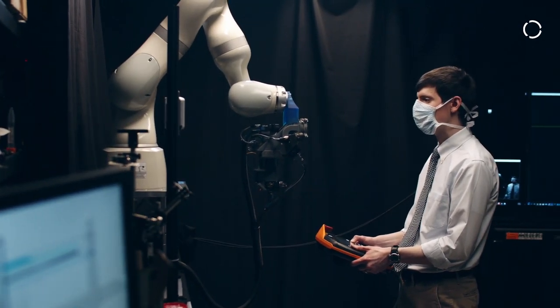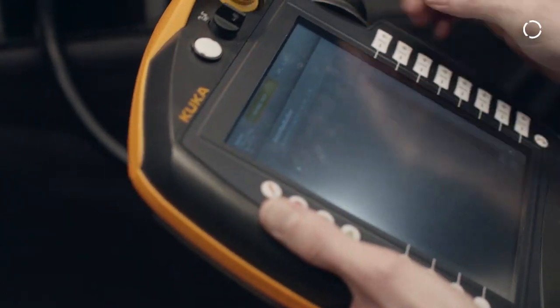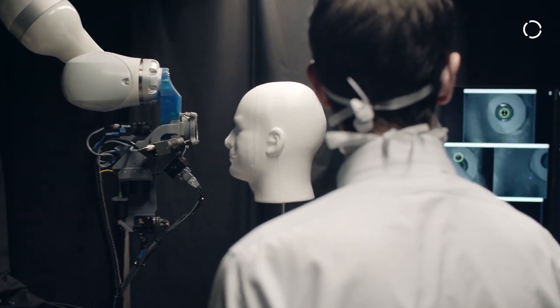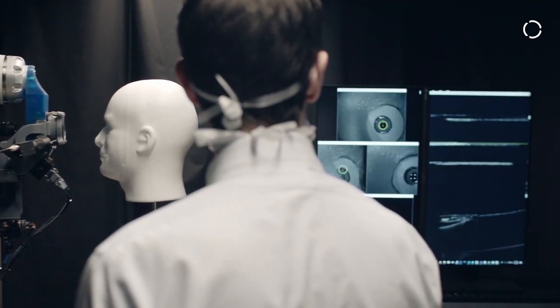There are two real main features of the system. The first is it can operate completely independently without any operator intervention. It does this using face tracking cameras to guide the scanner to the patient's face.